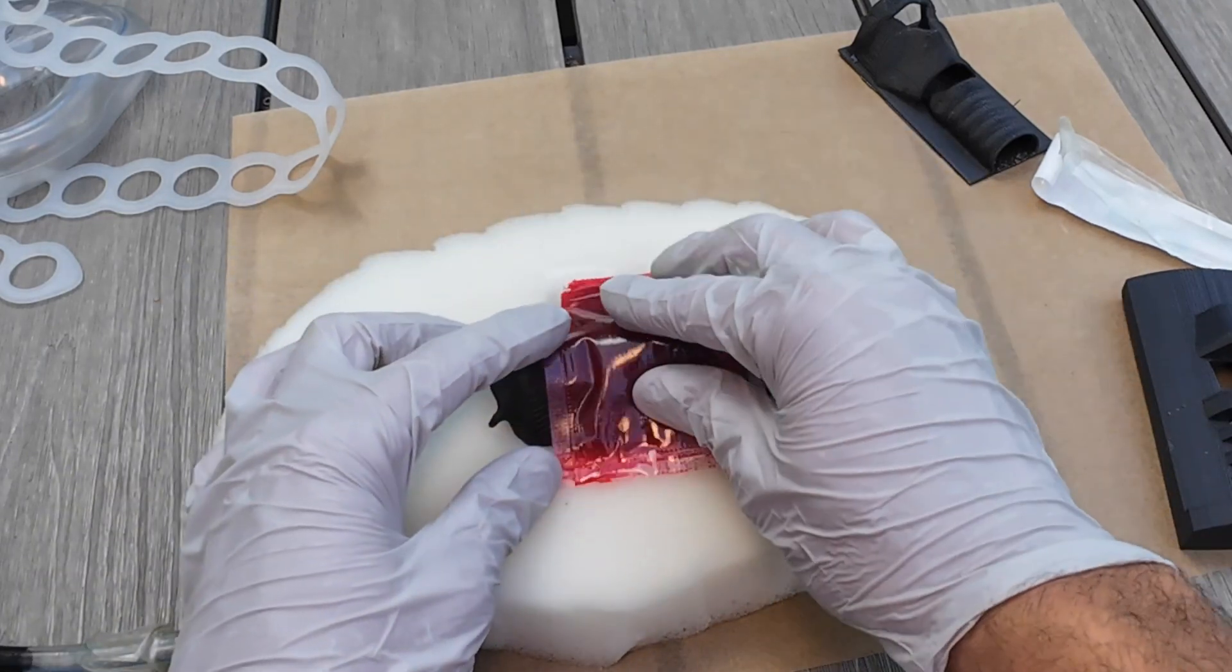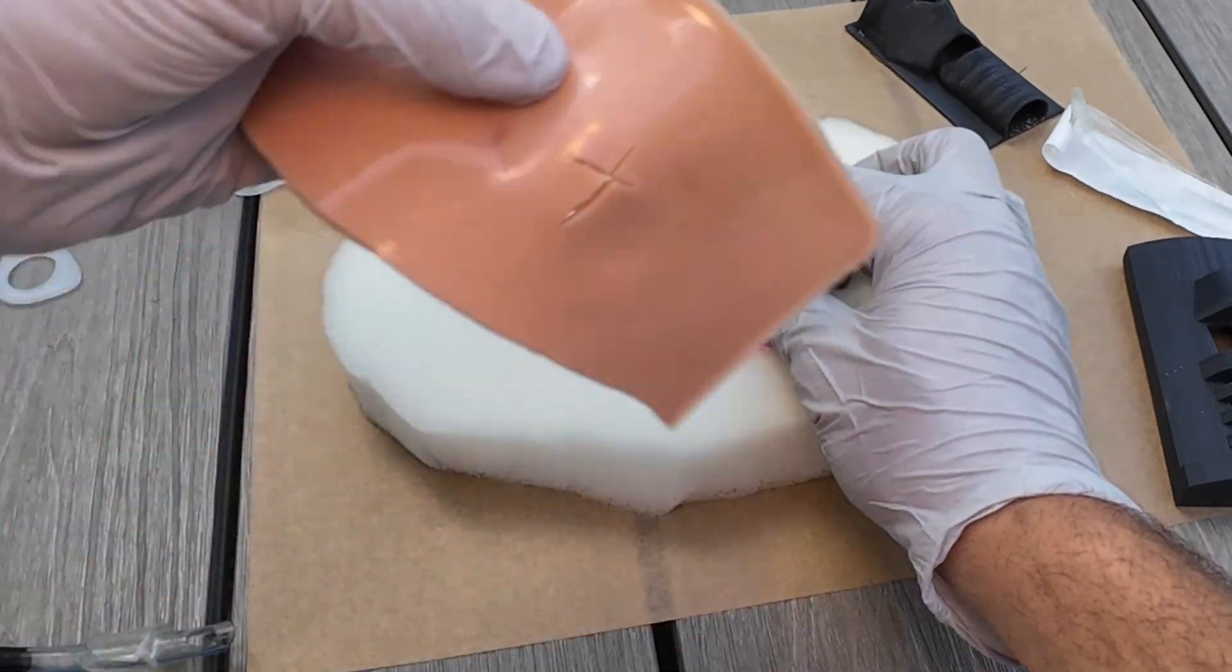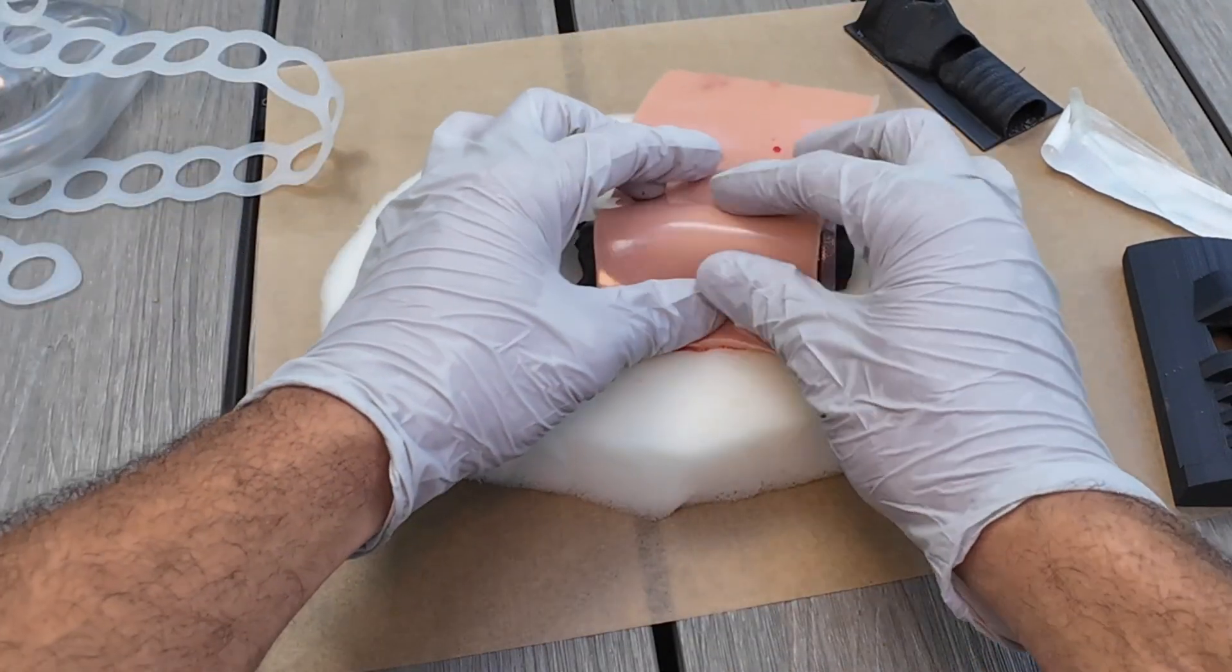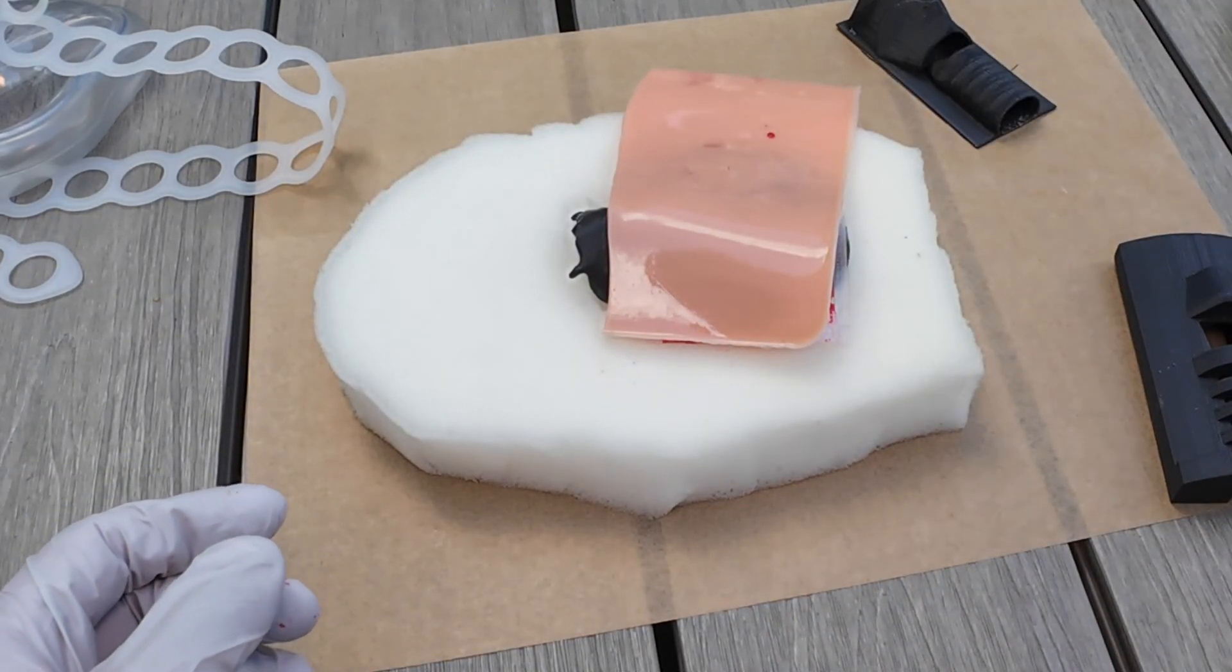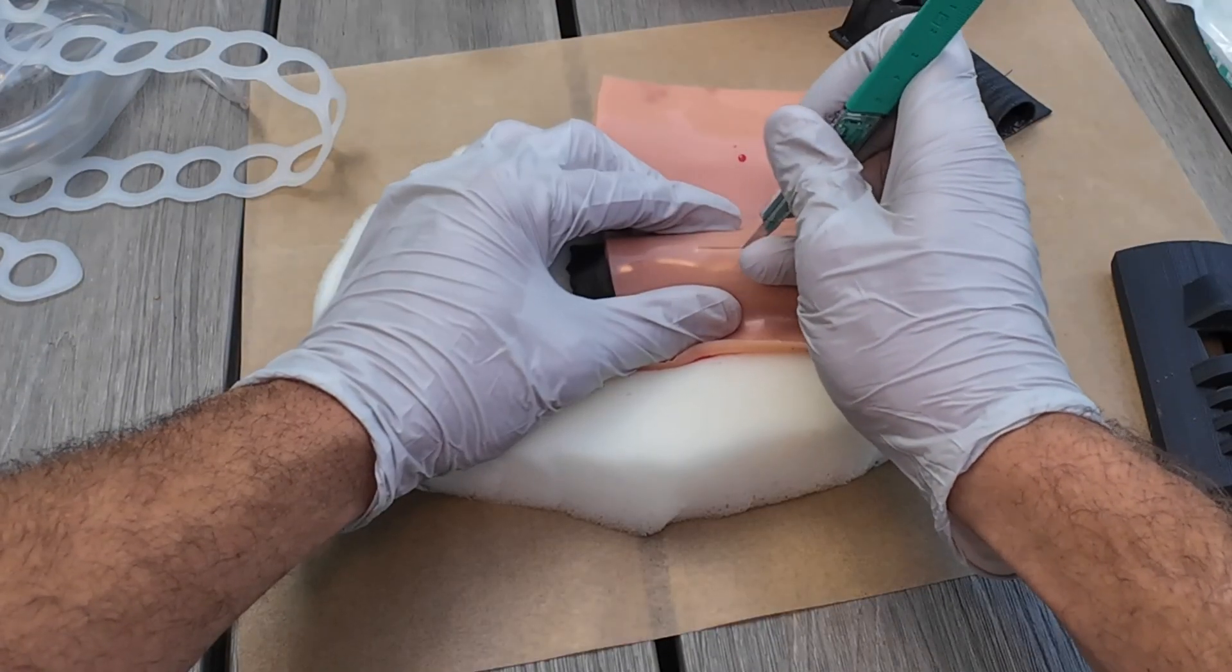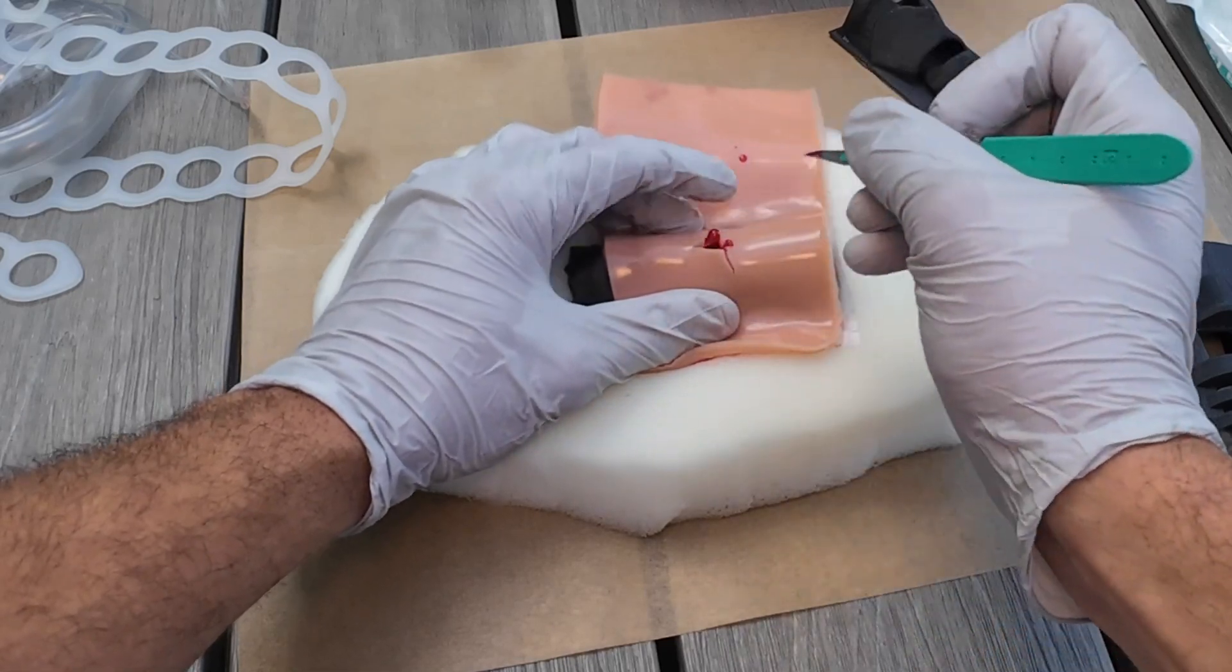If we want to do a blood pack, we want a bloody one. Take one of the blood packs, put it over top. Reuse another section. Right here. Gather our items back. Down. Cut. And now I'm getting blood. So now it gets the nastiness.